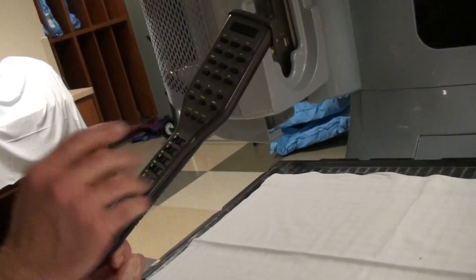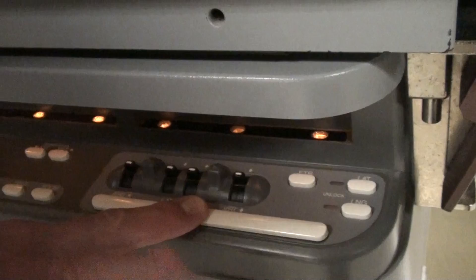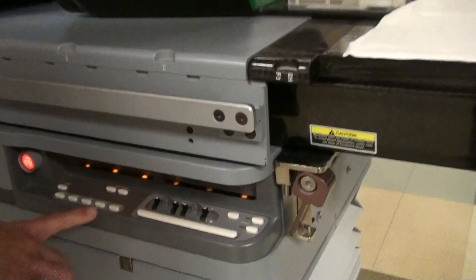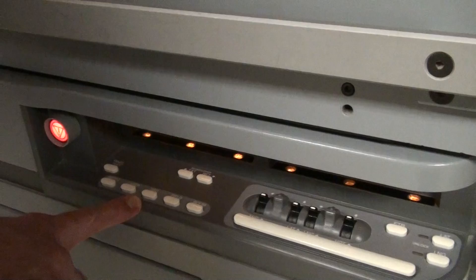Let's move to the side of the table. You have some of the same buttons in a slightly different configuration. You can control the table from here, and this motion enable bar has to be pressed in order to do any of this. You can also unlock the table and it will be free floating. Room, field, and SSD light — these three will be the ones you use most often. They just toggle.